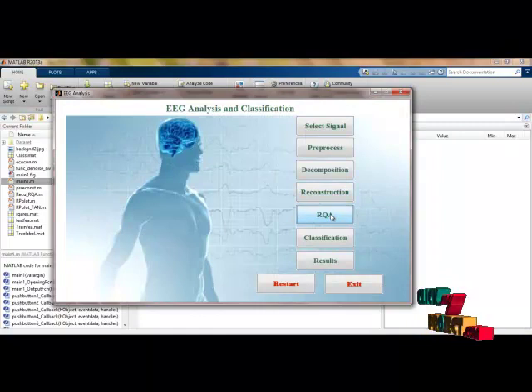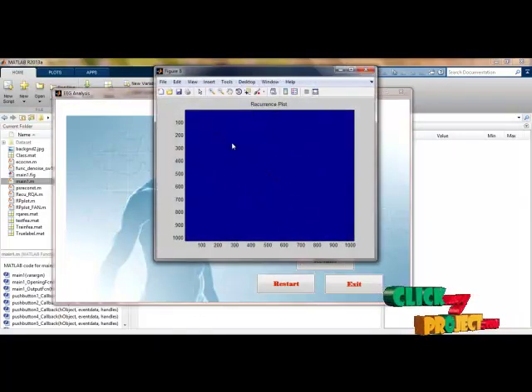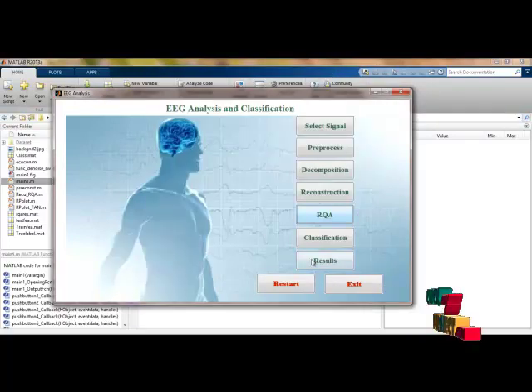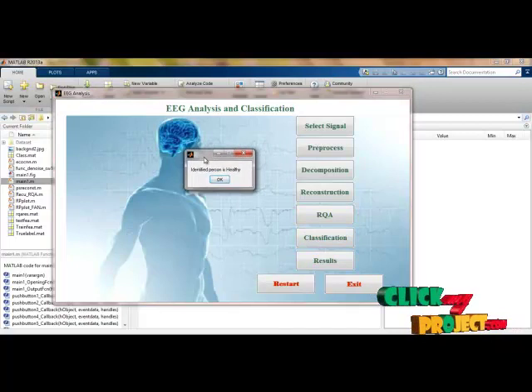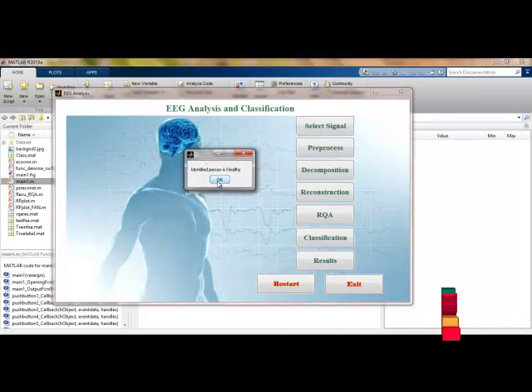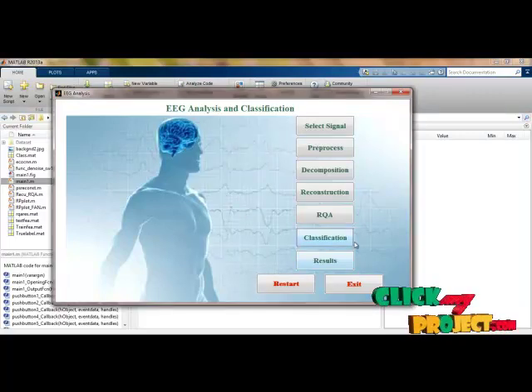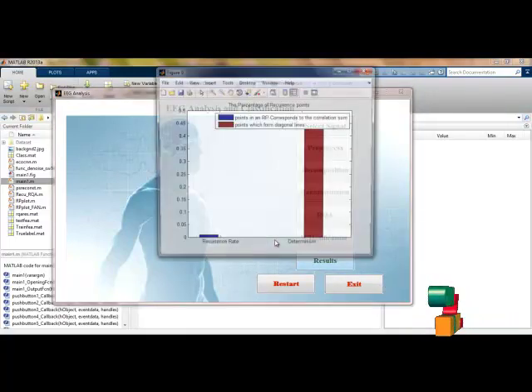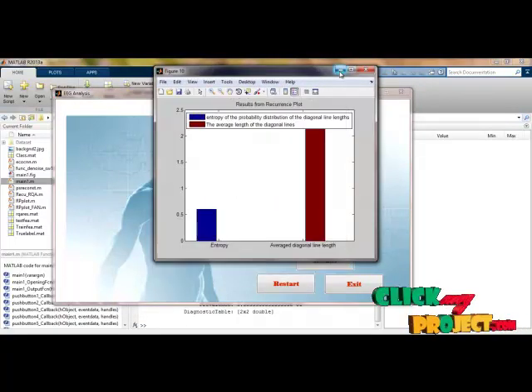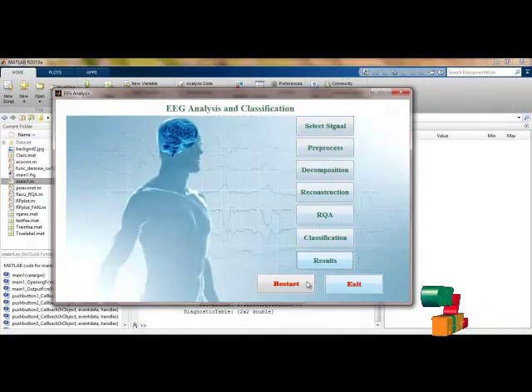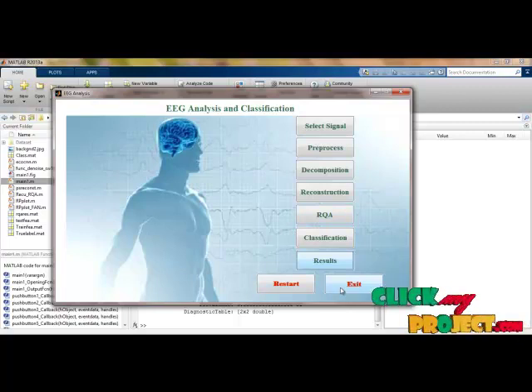Now I am applying the RQA recurrence plot. These are the recurrence plots and feature points extracted from the final signal. Then classifying: the selected signal is classified as healthy — the person according to this signal is healthy. These are the performance results, and we have compared them with our existing results. This concludes our process demo.